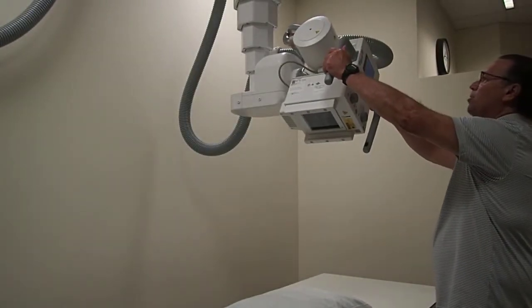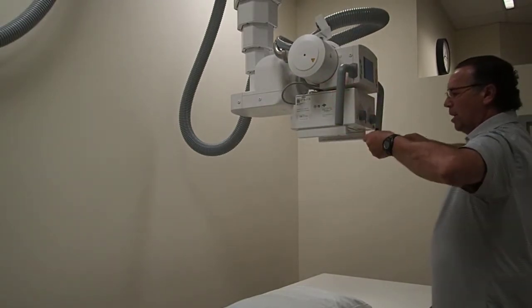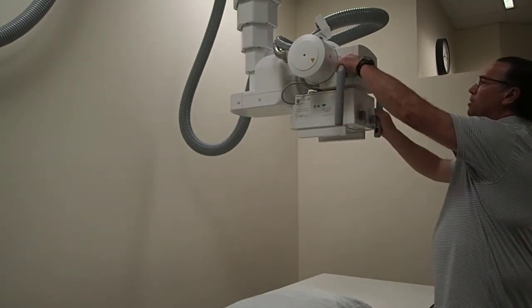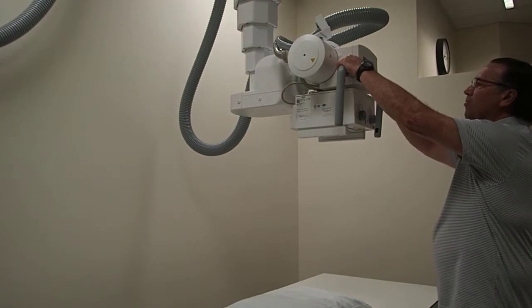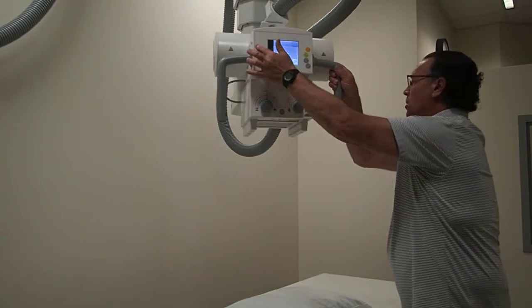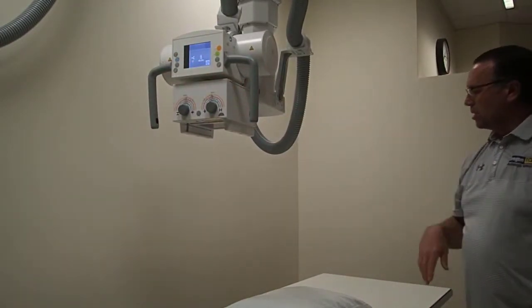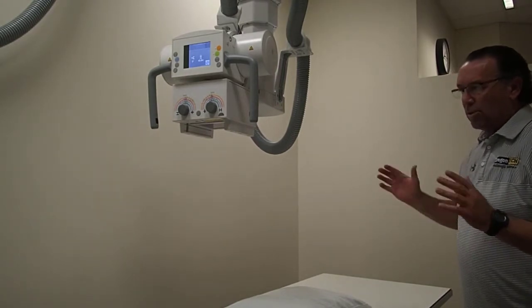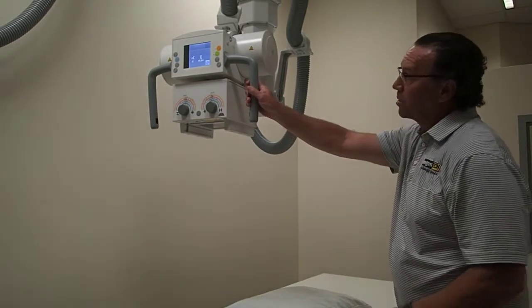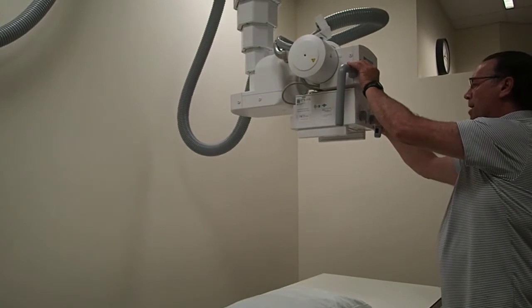Now these tubes do not pitch. To pitch, it would angle along the short axis of the table. So these ones don't do this. And then we have rotate. Rotate, we move the tube out from being over the top of the table. You would do this, get everything ready for a patient, and then once the patient is in place, you could bring the tube right back over.